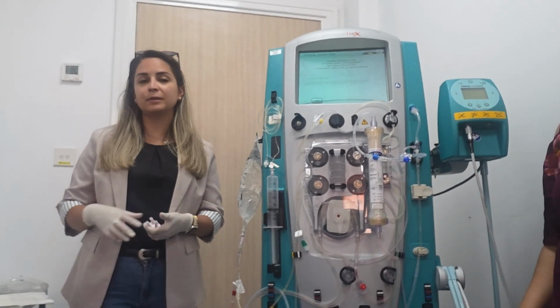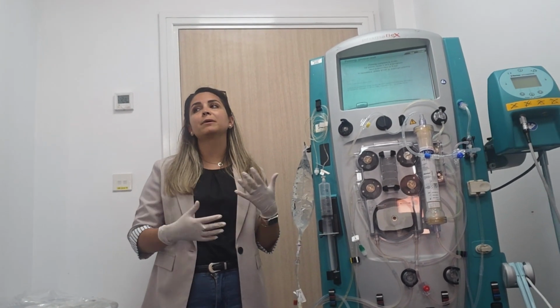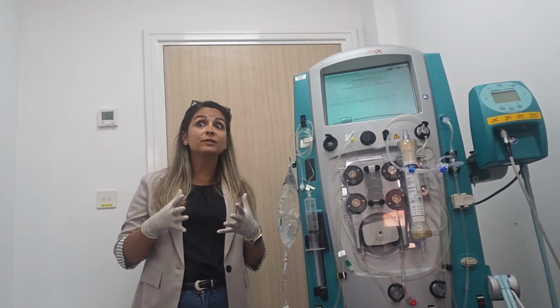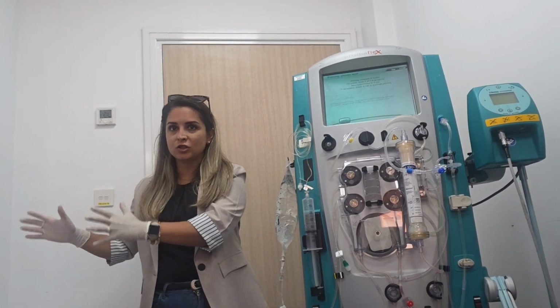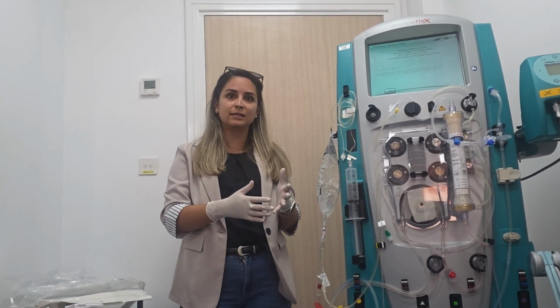Besides the sessions, the only thing you need to do is monitor frequently the ABGs and the ionized calcium. The most important thing is the ionized calcium from the patient. That's what I care about more than the session itself, okay?